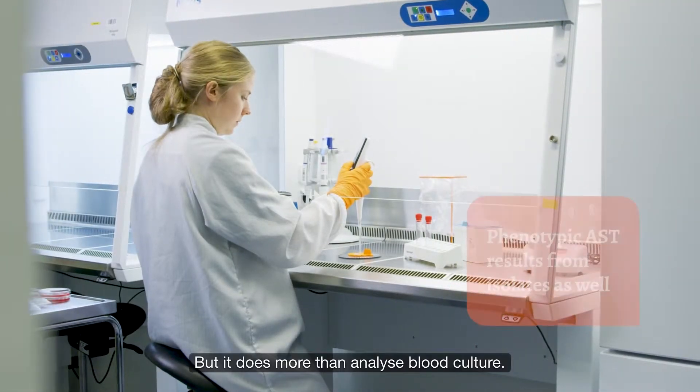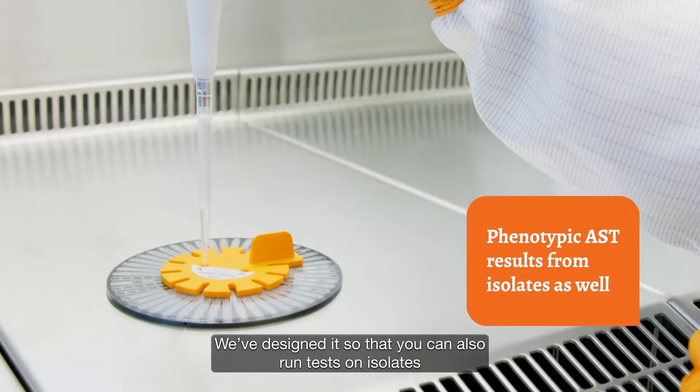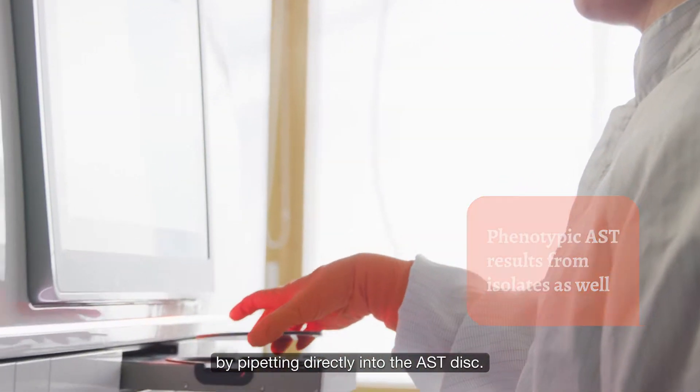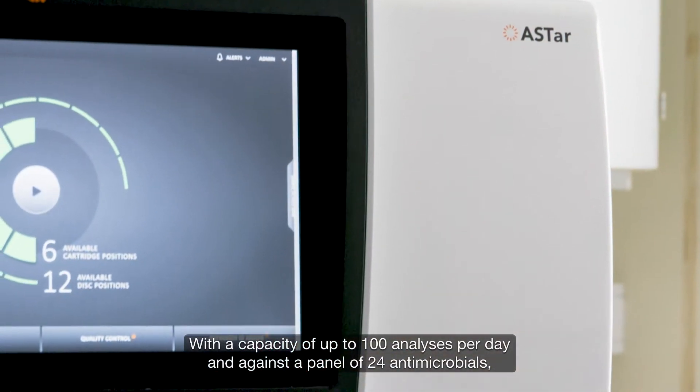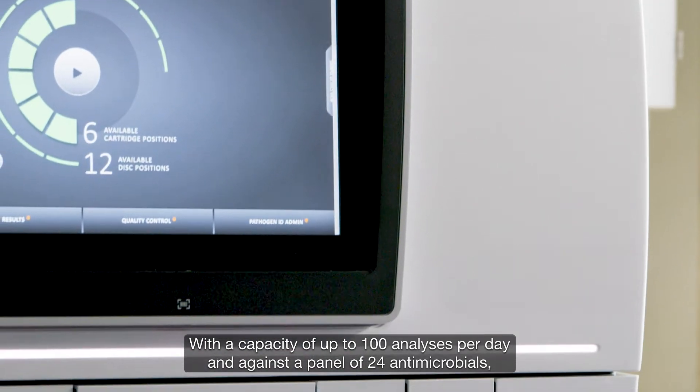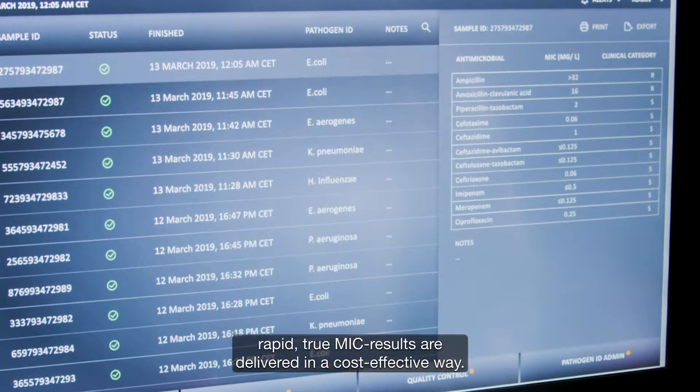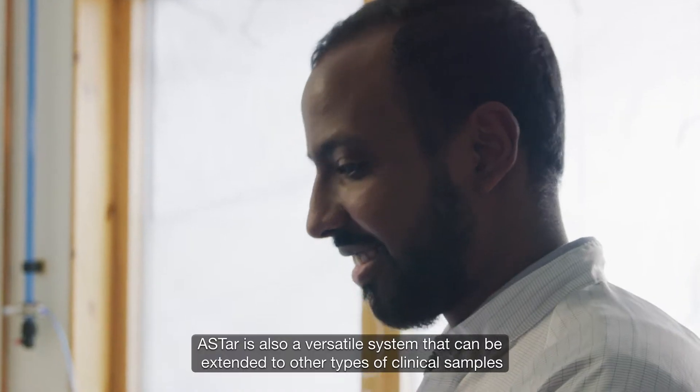But it does more than analyze blood culture. We've designed it so you can also run tests on isolates by pipetting directly into the AST disc. With a capacity of up to 100 analyses per day and against a panel of 24 antimicrobials, rapid true MIC results are delivered in a cost-effective way.